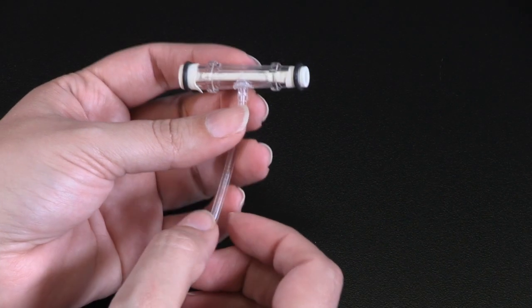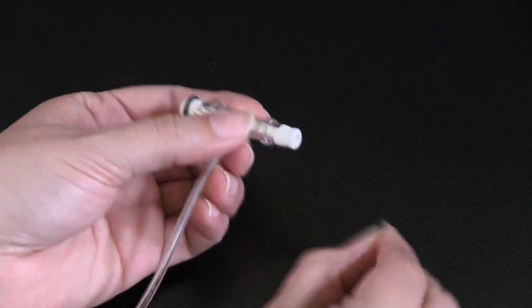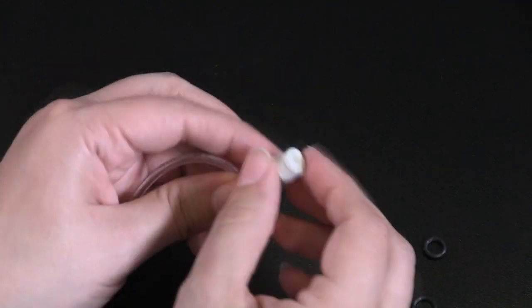To replace a VPR bladder, remove the O-rings or caps from either end of the cuff and slide the old bladder out of the cuff body.